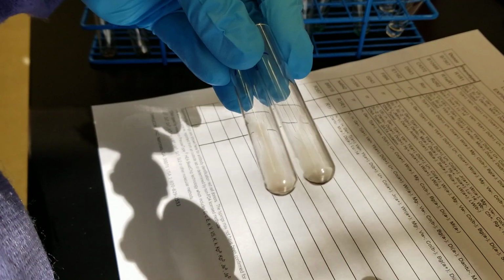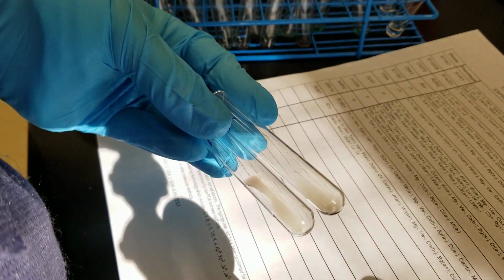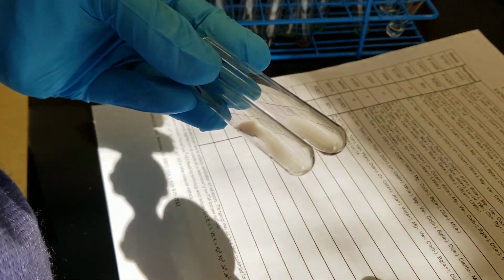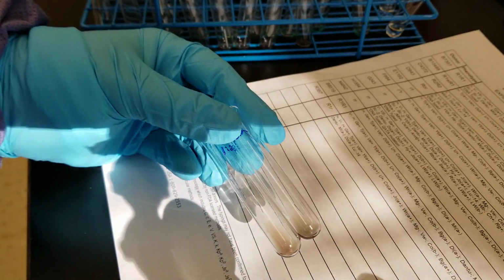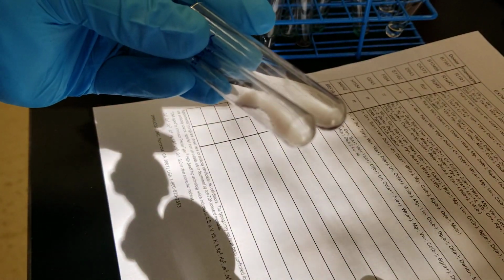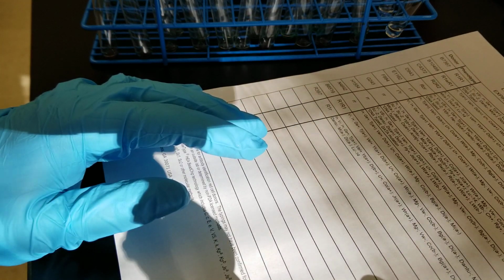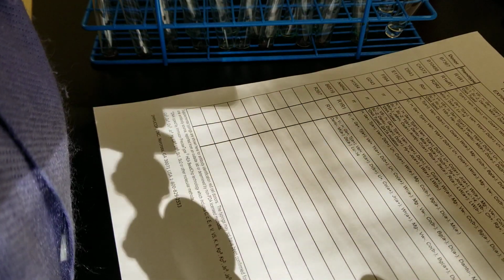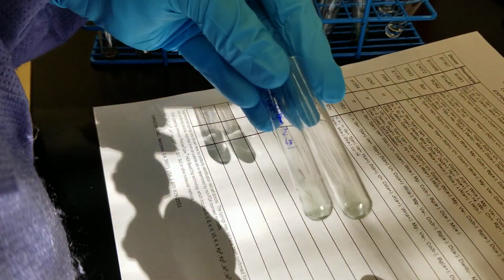All right. And like it was before, it's like sub-weak, but you could still see it's positive. But I'm just going to call these two negative. I mean, it's so tiny. It's weak all the way throughout. It's super weak here, but they're so tiny that we'll call them 0. The first two of visit number 1.